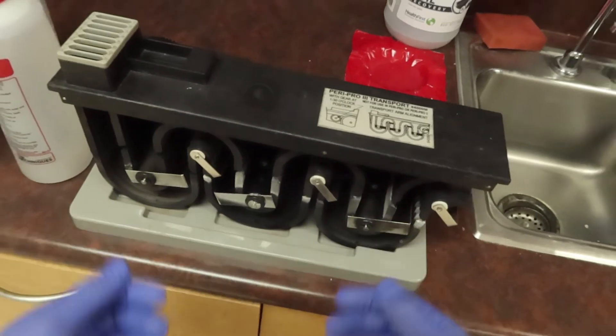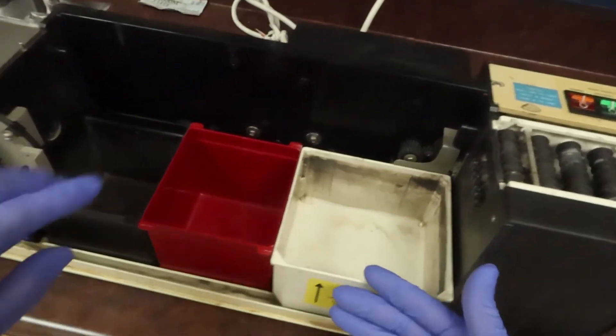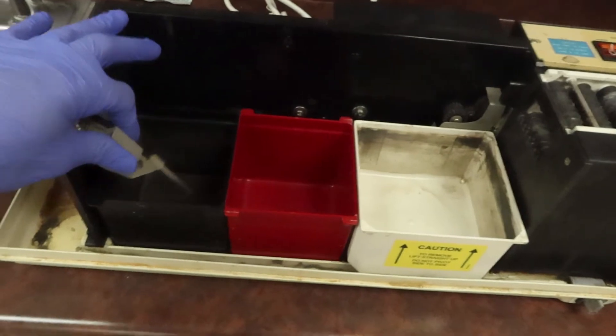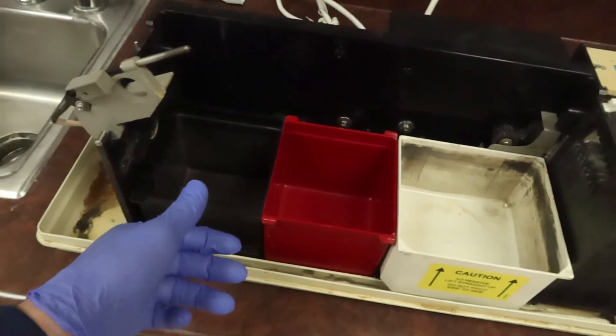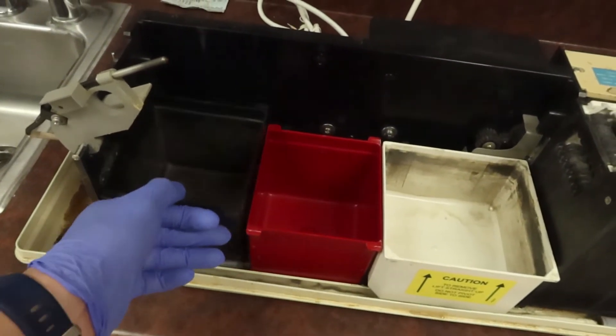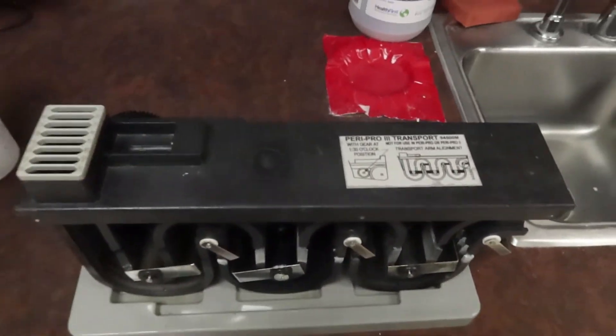If I need to remove my tubs, like I mentioned before, the black one is secured in by this little thermometer piece that I'm going to lift up, and I'm going to give it a nice little wash over here.